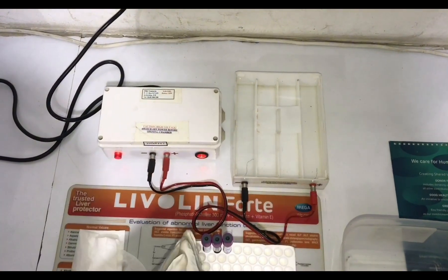Now the time is up. Let's pay close attention to the test results displayed on the screen. We used three controls and one patient sample. Before I interpret the test results, let's pay attention to this brief information. Before I started with the procedure, I lysed the cells. This is the basic thing you have to know about Hb electrophoresis. All the controls and the patient sample were lysed.